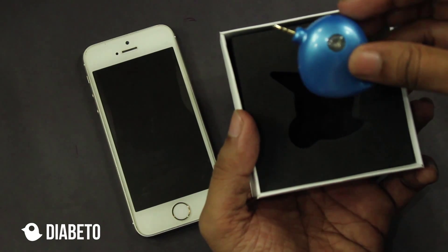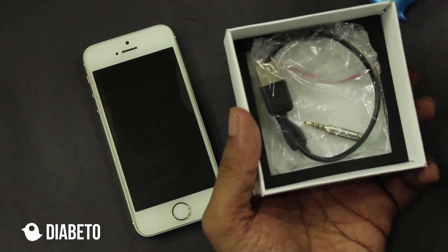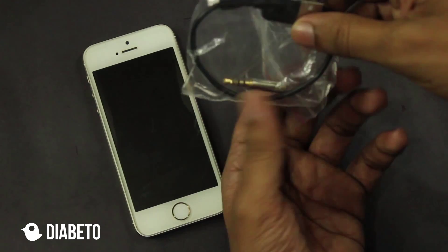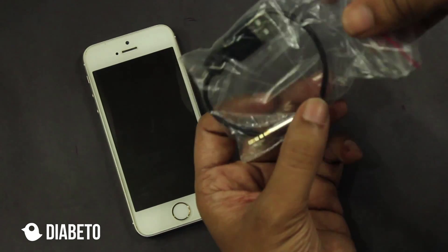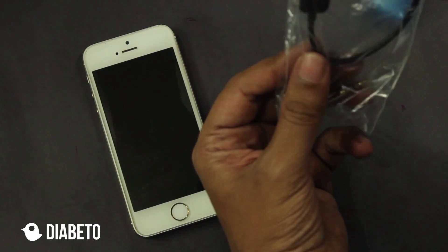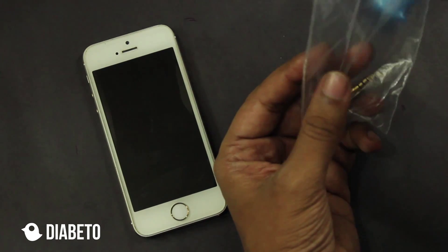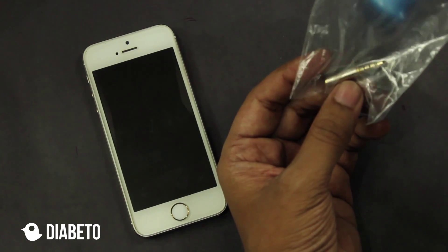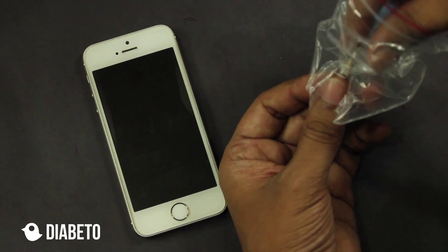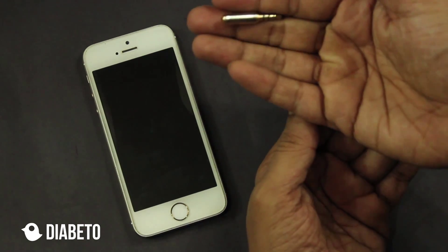There comes the amazing Diabeto — looks pretty, isn't it? When you actually open the entire casing, you will see that your Diabeto packaging also comes with a USB cable for charging your Diabeto. If you use your Diabeto about four times a day, when it's fully charged it should be okay for about 22 to 25 days. And also this adapter.